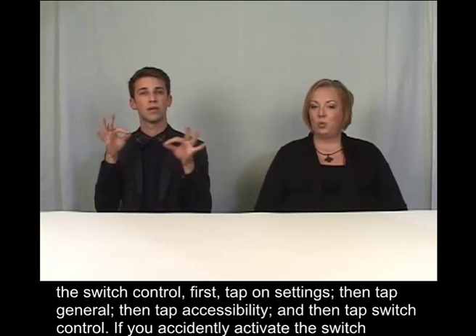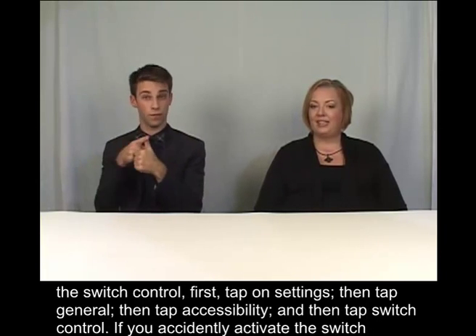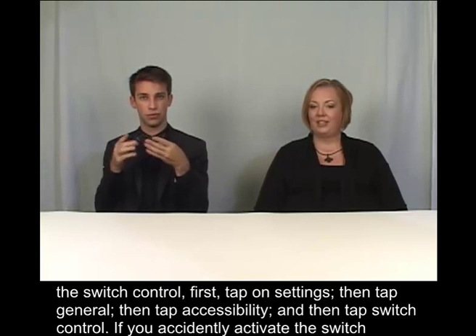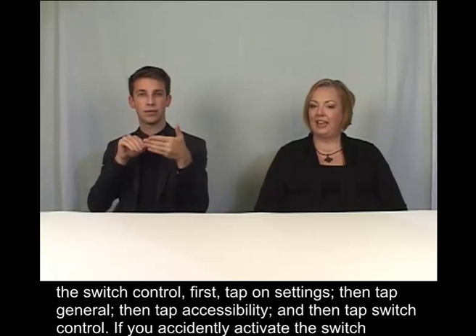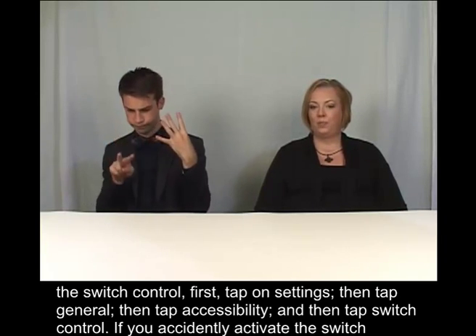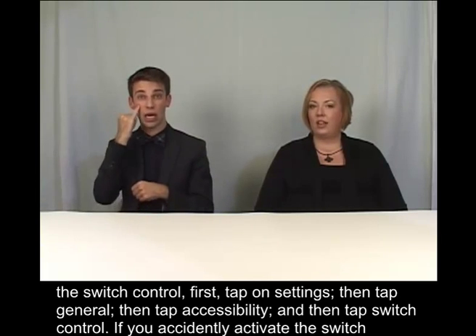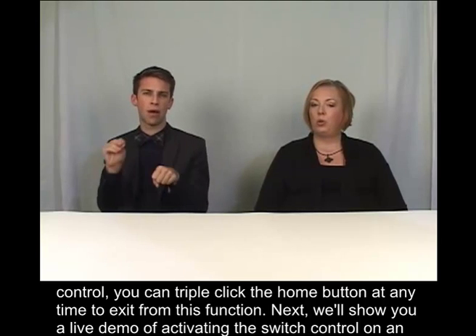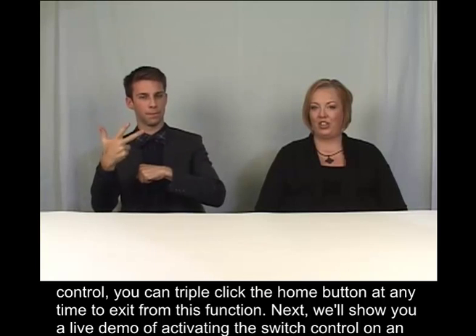To activate Switch Control, first tap on Settings, then tap General, then tap Accessibility, and then tap Switch Control. If you accidentally activate Switch Control, you can triple-click the Home button at any time to exit from this function.